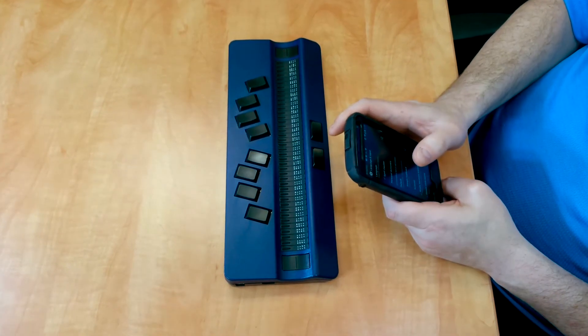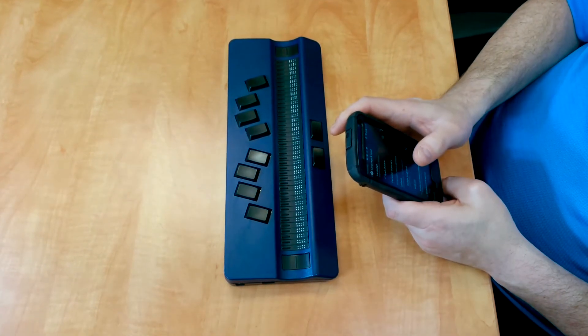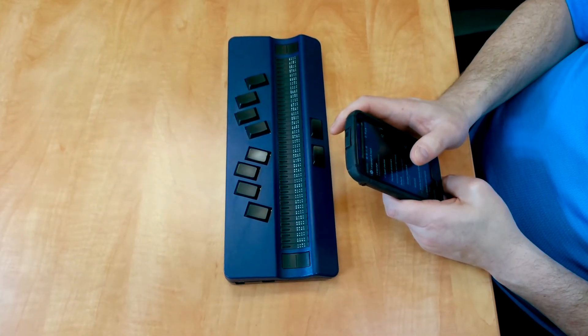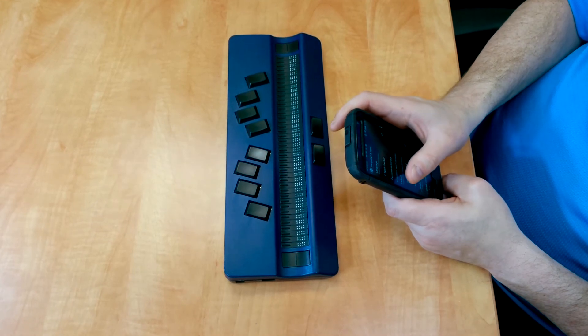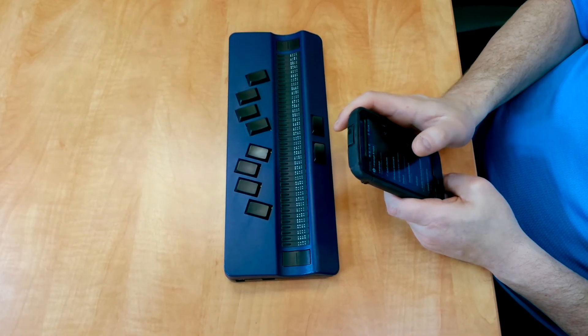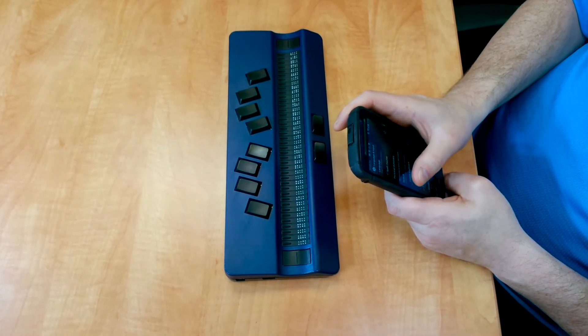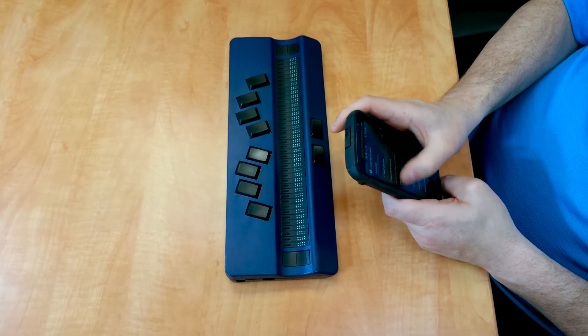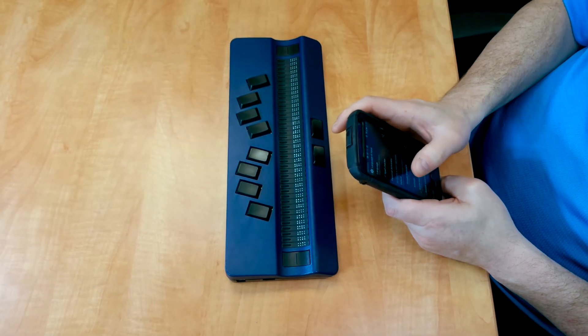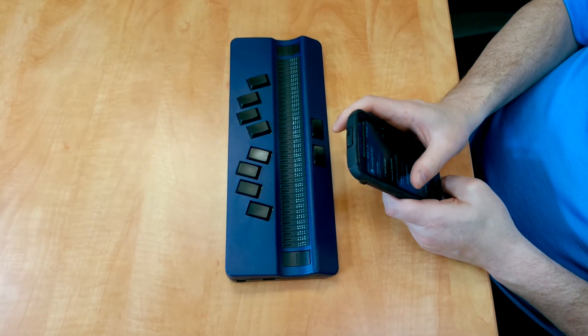Language and Input. Showing Items 1 to 9 of 19. So we're looking for keyboards. Language and Input. Navigate up. Keyboard and Input Methods.